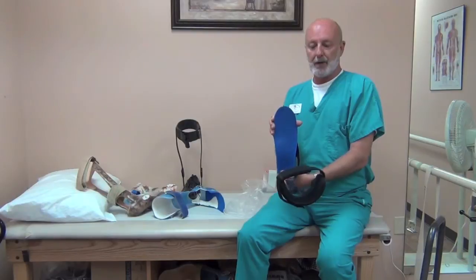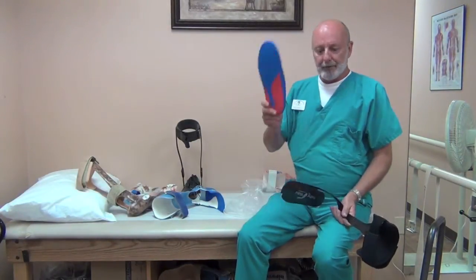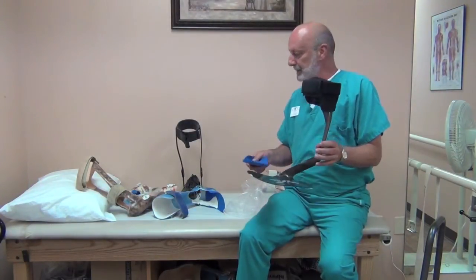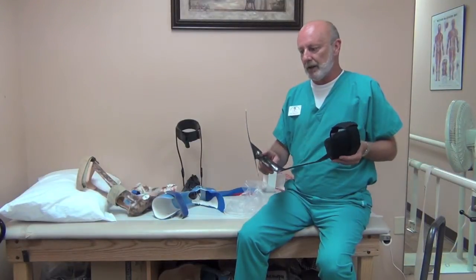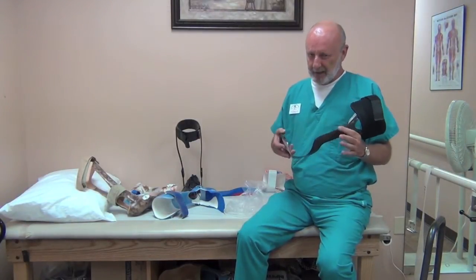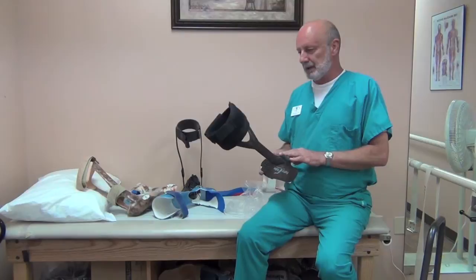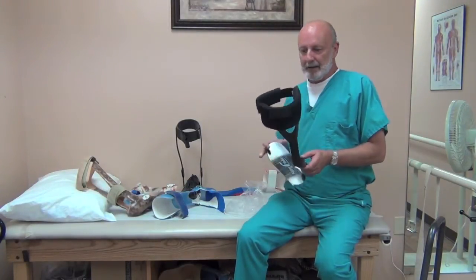You would basically just use the foot orthotic on top of the AFO. A foot orthotic in conjunction with this will also control a lot of unwanted motion and maintain the foot in good alignment. It's easy to walk in, very effective, and provides immediate results. These are pricey, but they are covered by insurance. They do have a tendency to fail — this particular design I haven't had break yet, but others I have. They are guaranteed for about six months to a year depending on the manufacturer, after which replacement would be required. Breakage isn't real common but it does happen. These are rated up to about 250 pounds — some brands 220 — so depending on your size and activity level, if you are a very active person you may not want to use this one because it can fail.